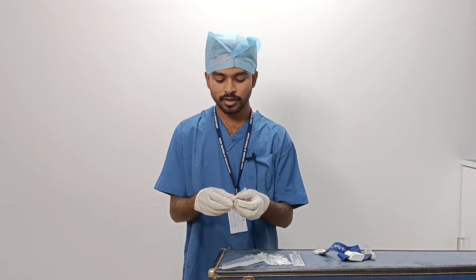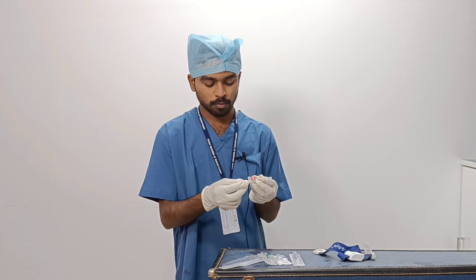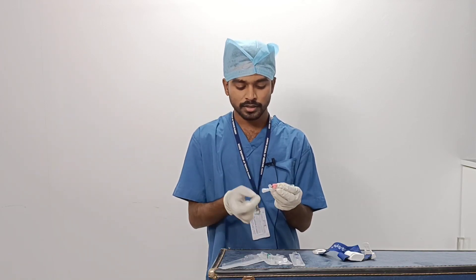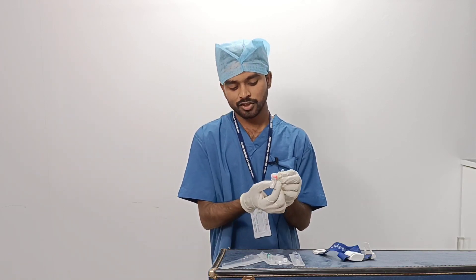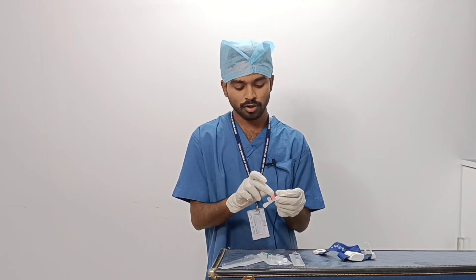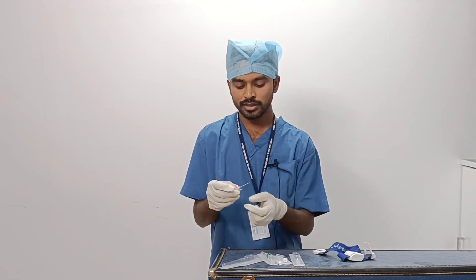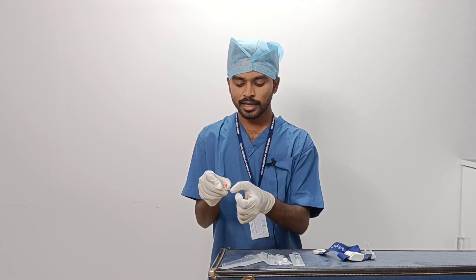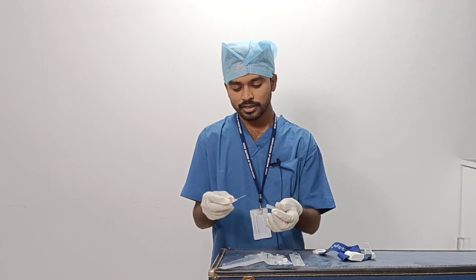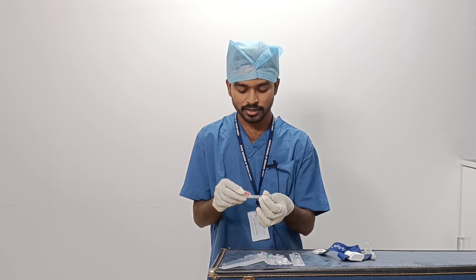The parts of the IV cannula are: the luer lock plug, the needle grip, the flashback chamber, and the injection port. If you remove the plug, you have the catheter and the needle. These are all the parts of the intravenous cannula.